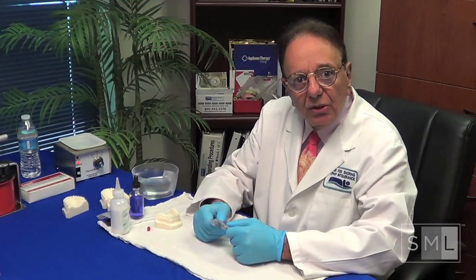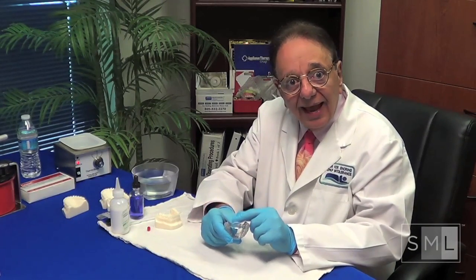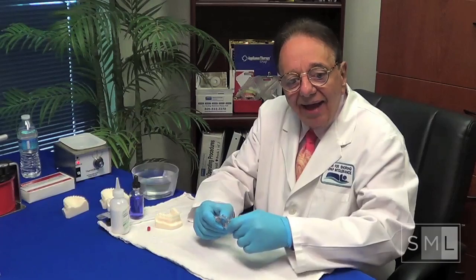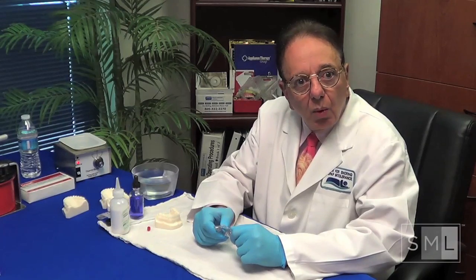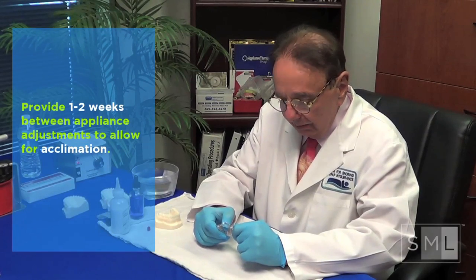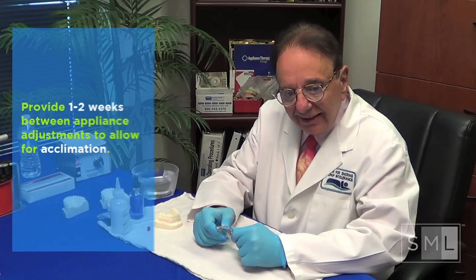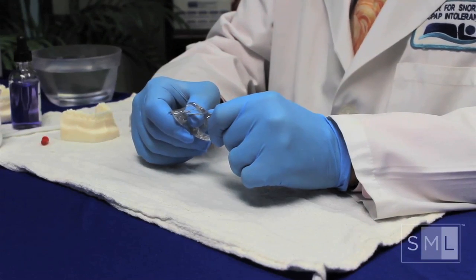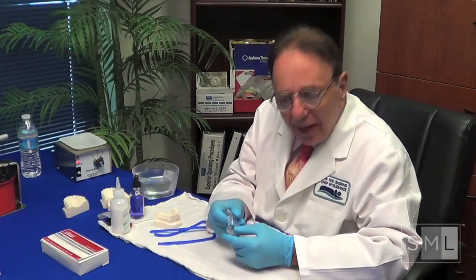Let's take a look at what we do for the 90% that can tolerate the Full Breath with the tail, because that's what we're going to be doing over and over again. After giving them one week to wear it — we want them to become acclimated and comfortable with it as part of them — before we start making additions to the tail. I've learned that if you have them wear it for one week, the rest of the way goes easy.